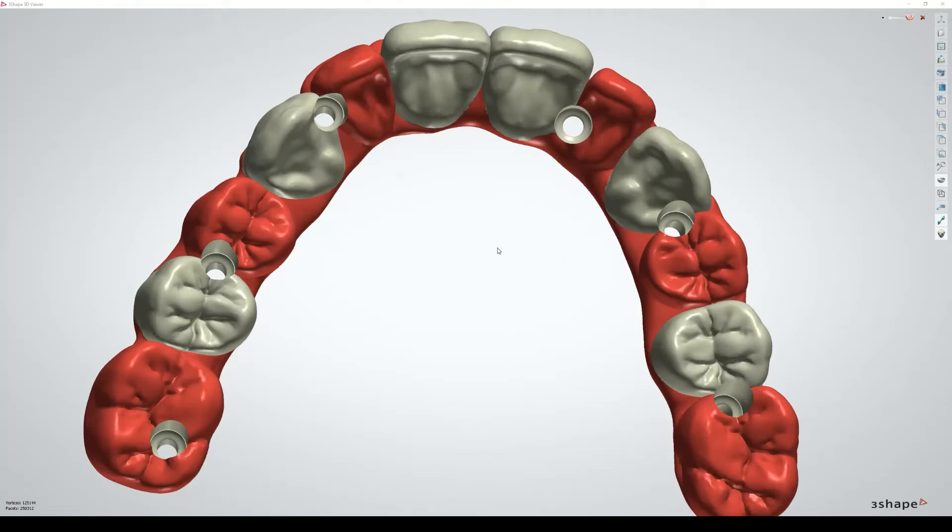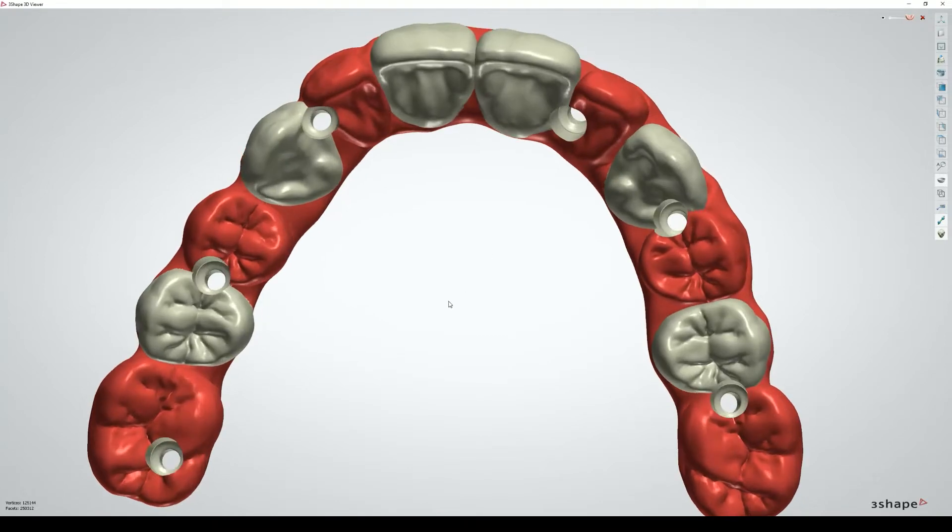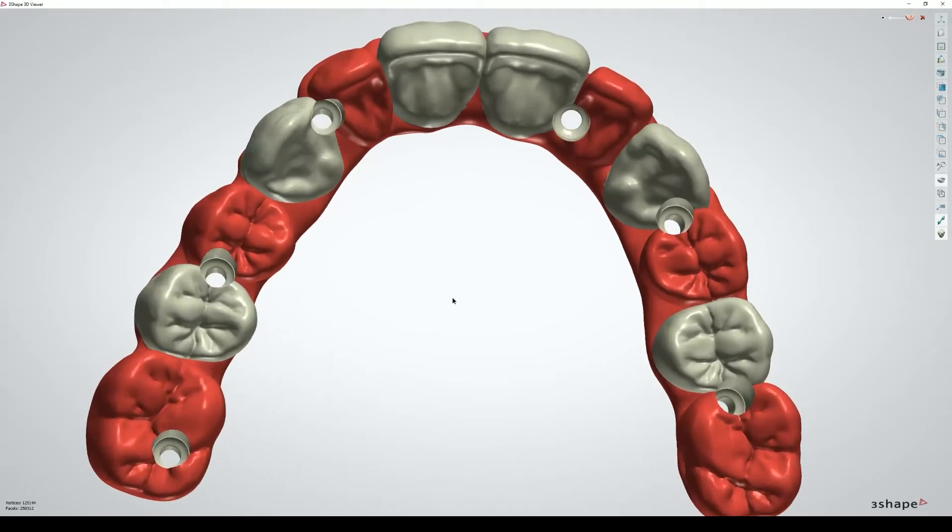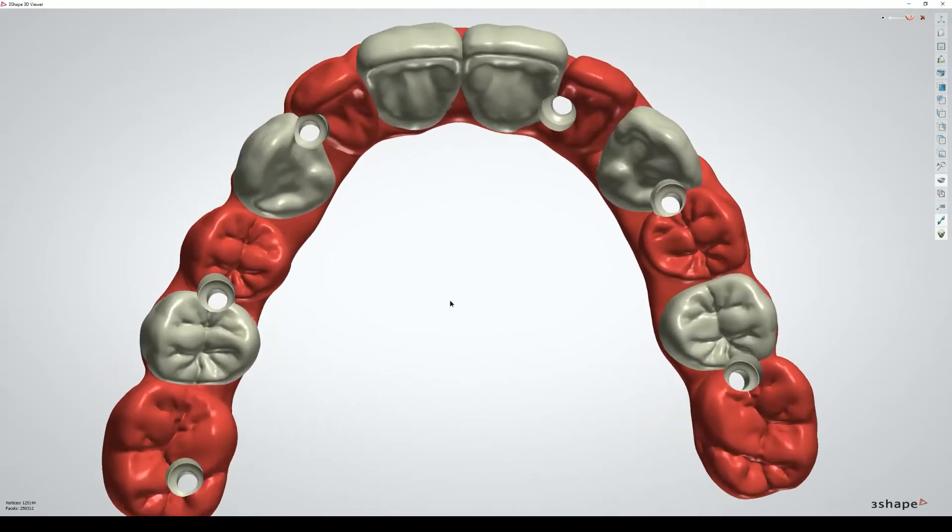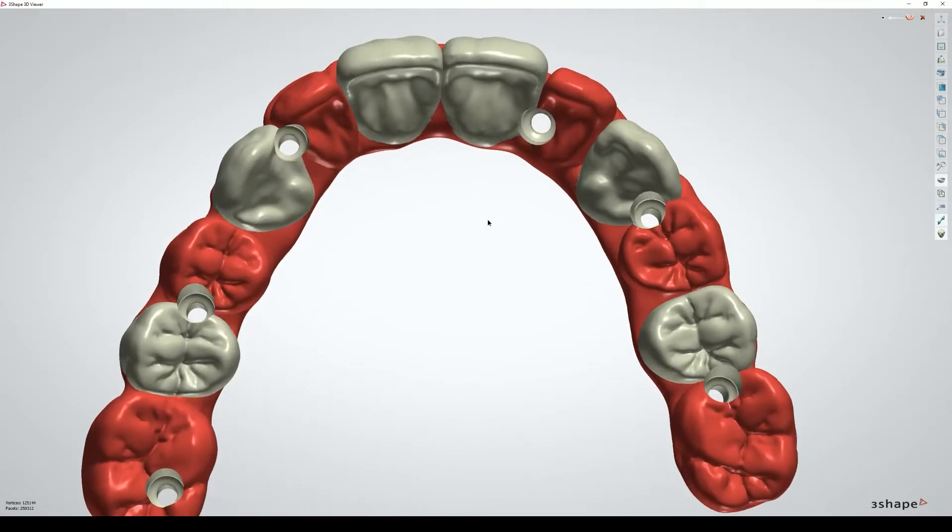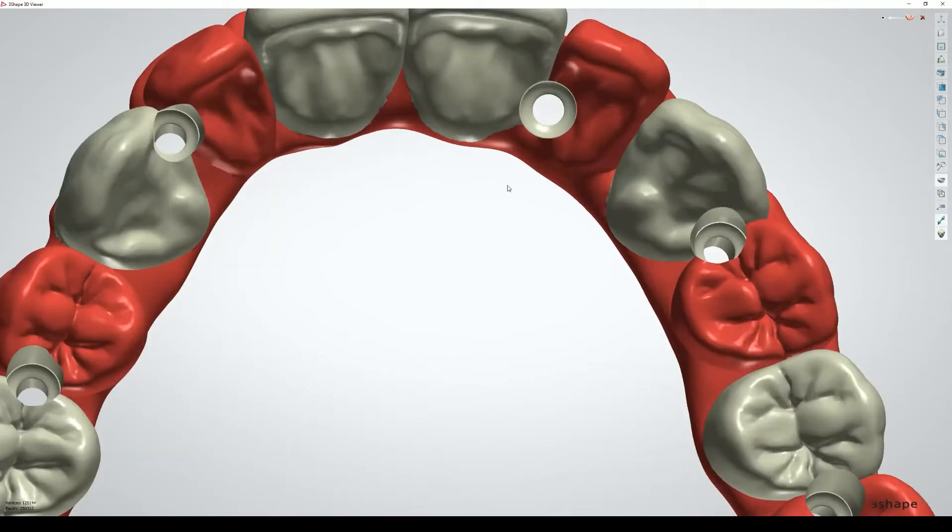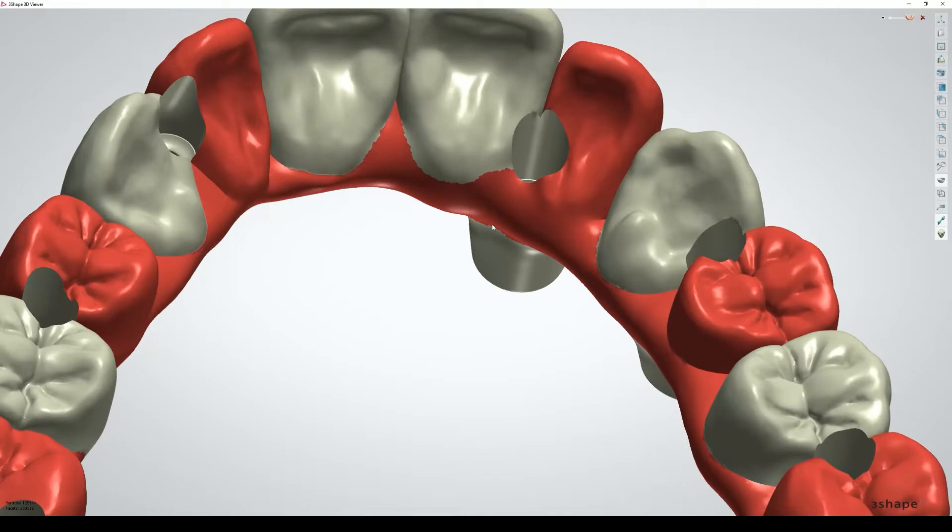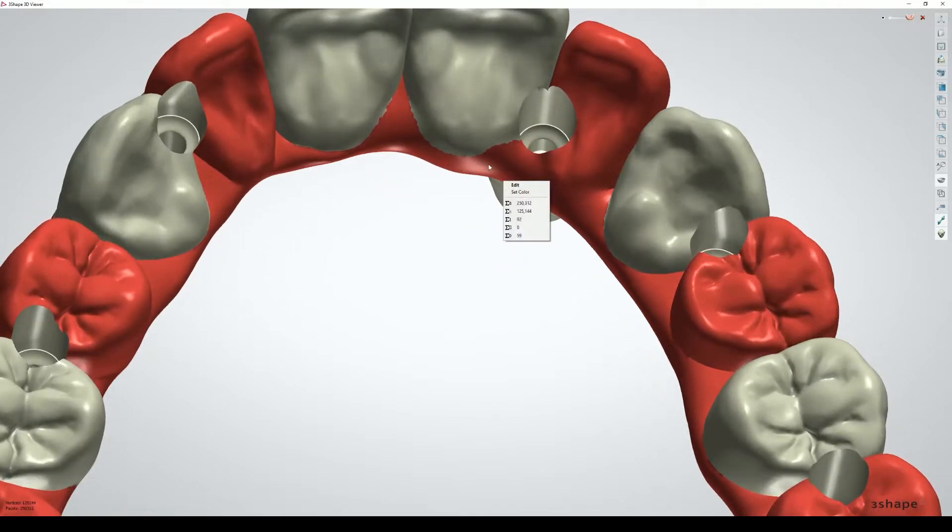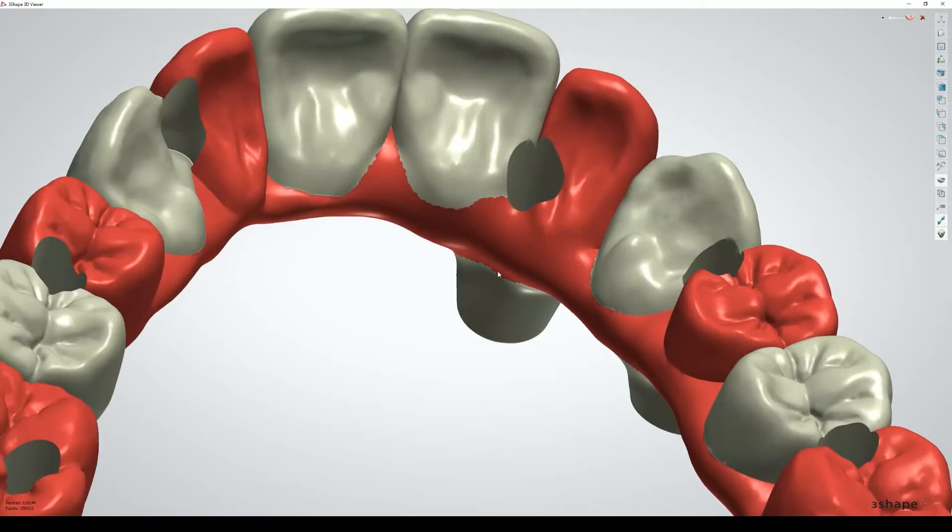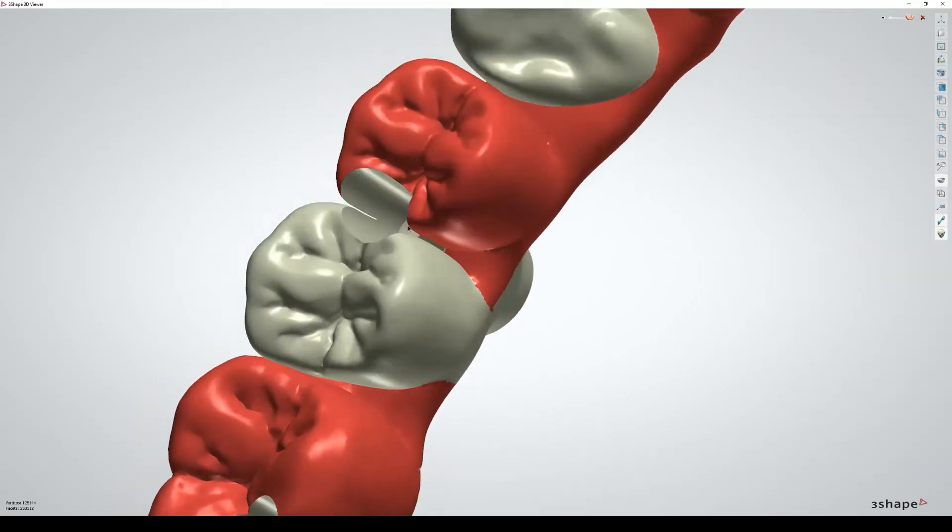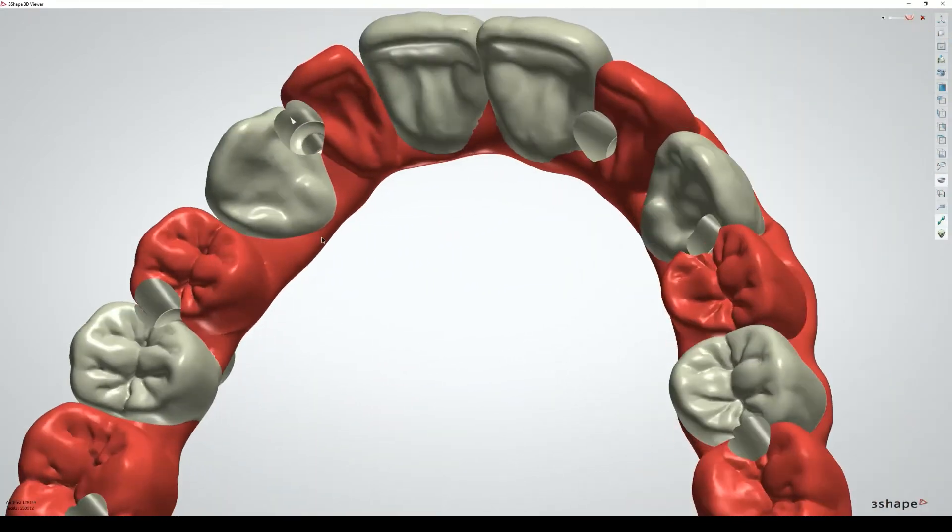I had a question that came in this morning from a friend of mine. He did this all-on-six design and was doing some QC before putting it into the cam. He's not too happy with how thin it looks in certain areas, and there's a couple of trouble spots, like at this embrasure here.